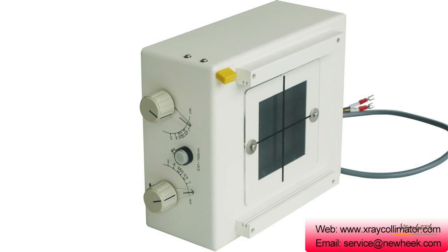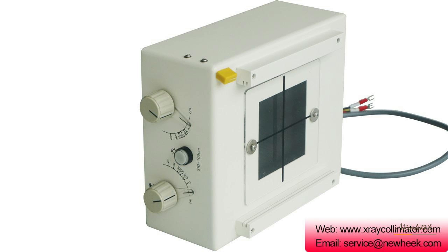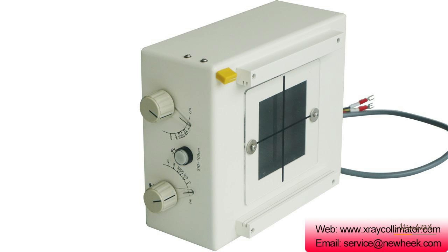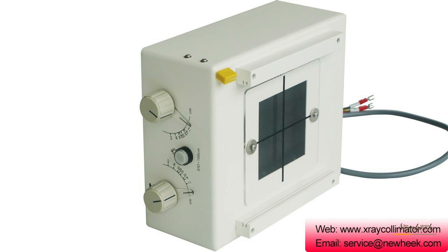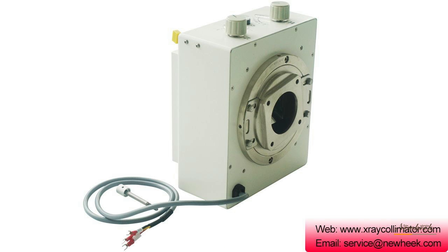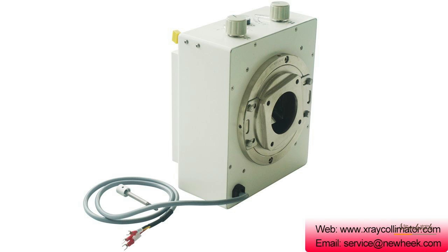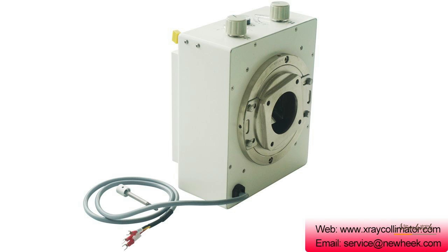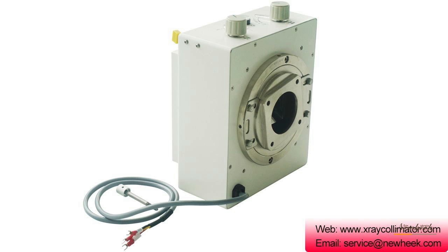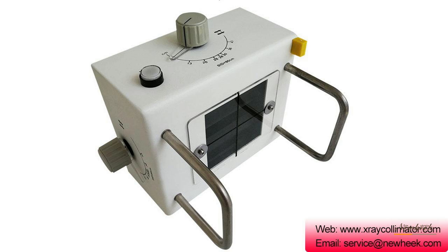The X-ray collimator has a stable system with multi-function square view, ensuring that X-rays can be collimated from the largest possible area. The outer wall of the collimator is fully double-lined with lead.